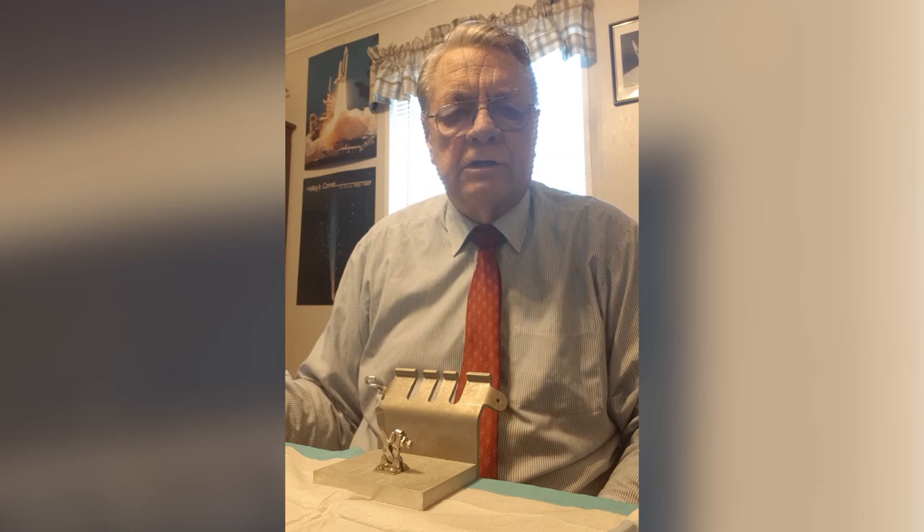Hello, my name is Robert Richter and this is a short demo of how a peritoneal dialysis patient can make his connections only with the use of one hand.